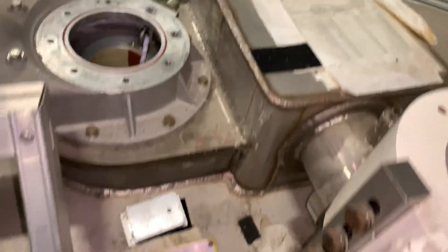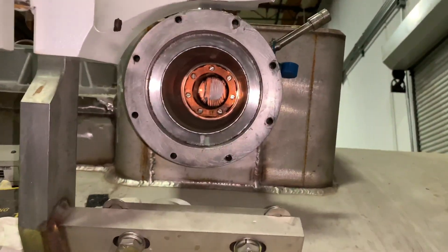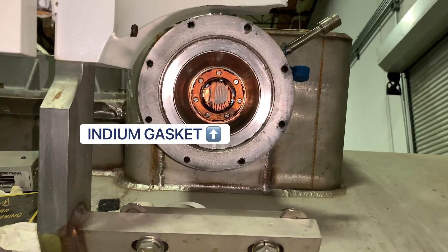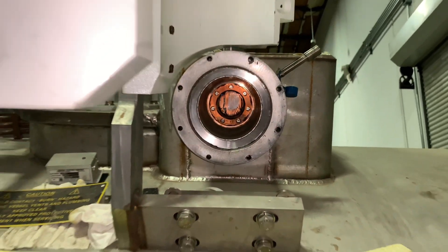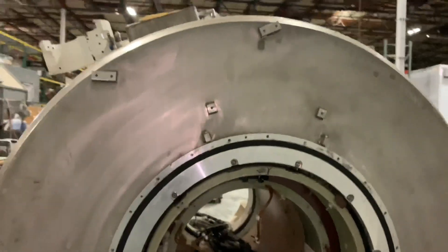The cold head has been removed from this magnet, so let's take a look inside. The cold head works to recondense the helium gas inside the MRI by mechanical compression and operates at temperatures only 4 degrees above absolute zero. This cold head motor contains highly ferrous material that requires a heavy metal casing to function in the magnetic environment.